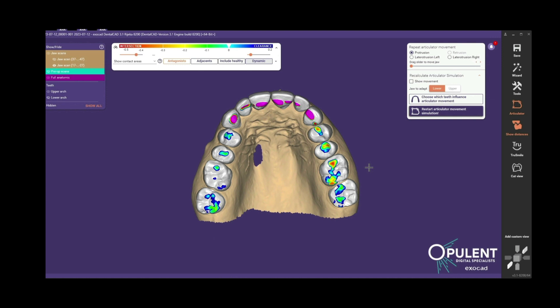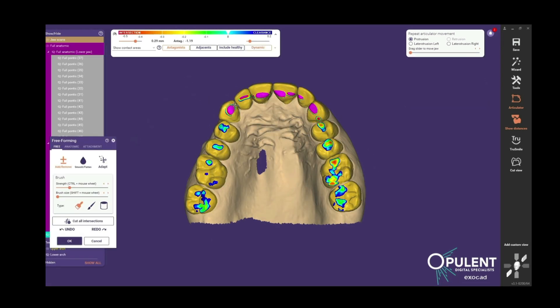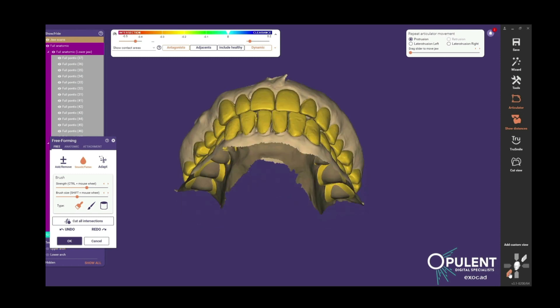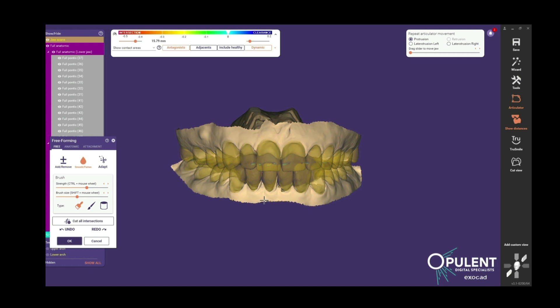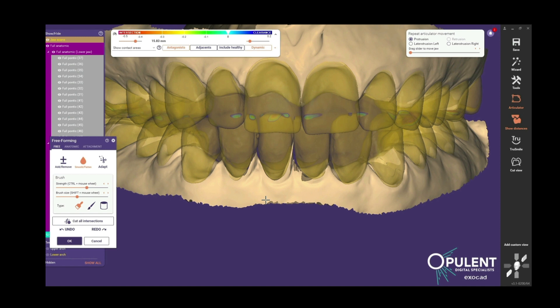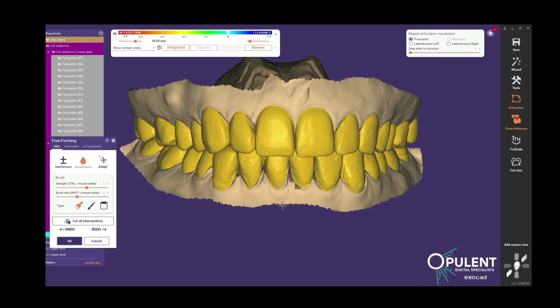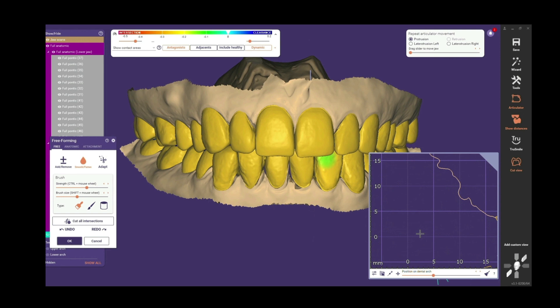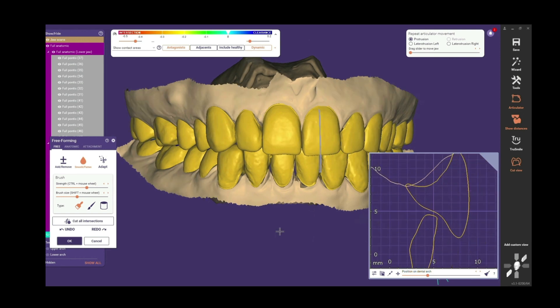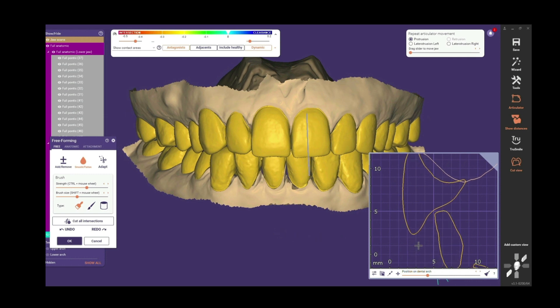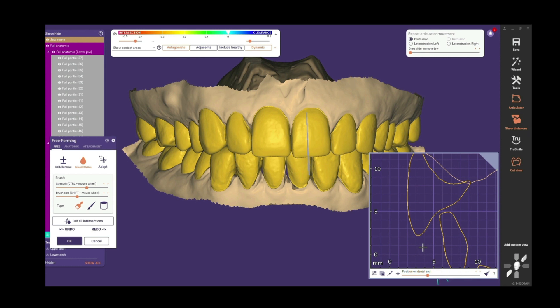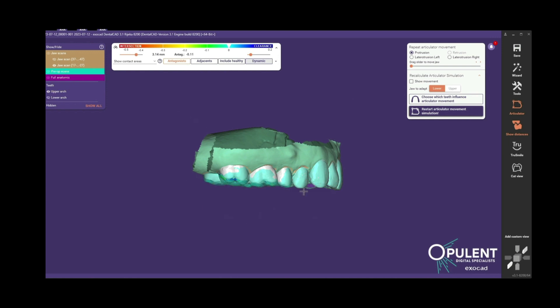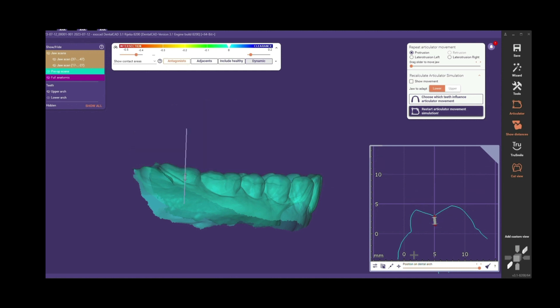We're in the ballpark — we'll finish detailing that occlusion. We go and remove all the excess composite on the anterior teeth using our free-forming tool to get back to just natural tooth structure. Once we've detailed the occlusion, we go back and evaluate the anterior coupling. Using transparency, we've got about three millimeters there, and we'll measure that more precisely with our cut view. In the cut view you can measure your overbite and overjet to make sure you have adequate coupling and function — and you can see that we do. Now you're going to use that same cut view to evaluate the posterior teeth and how much intrusion was achieved, overlaying your pre-op model with your working model — here we have 1.47mm using the cut view on the upper teeth.